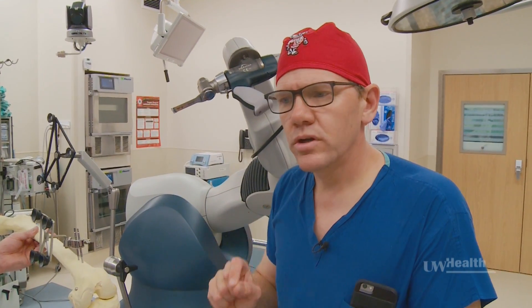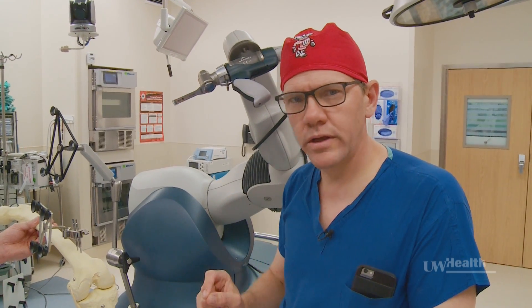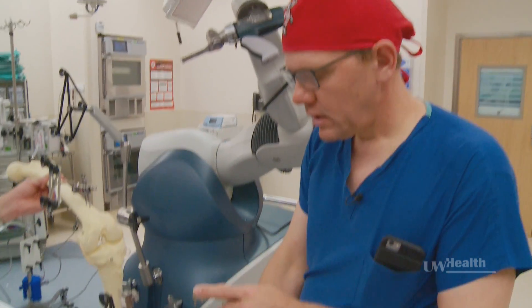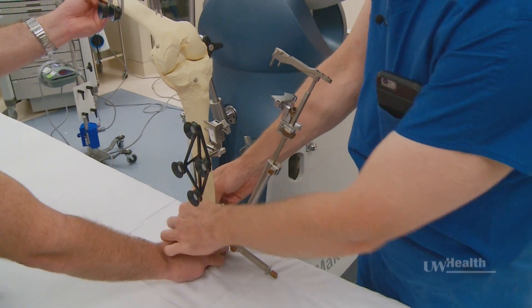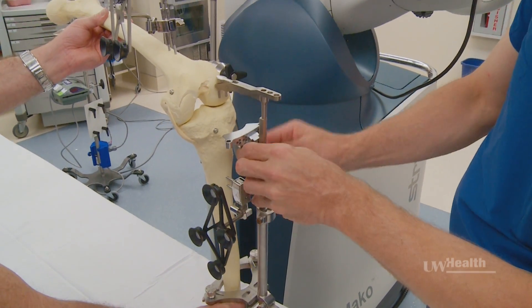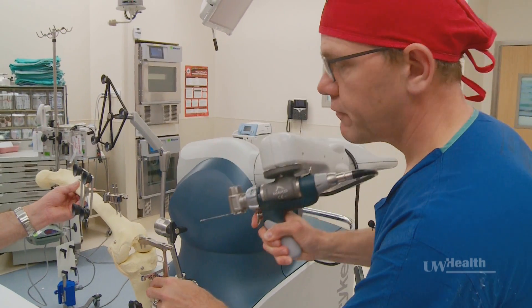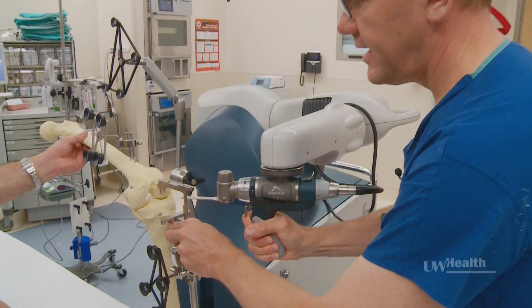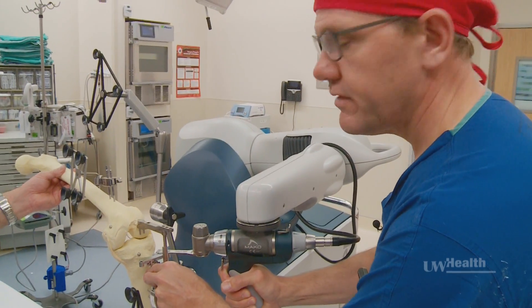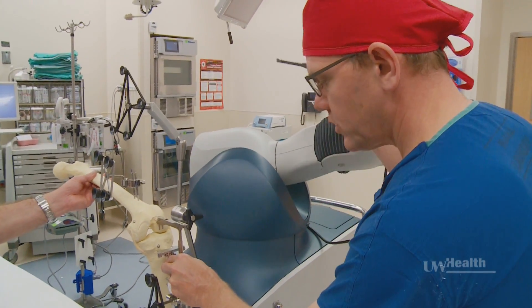I think it's important to understand the differences between manual total knee replacement and robotic total knee. When cases are done manually, a device like this goes on the leg and then a saw blade freehand — just in my hand — rests on a device like this, and we use regional anatomy.